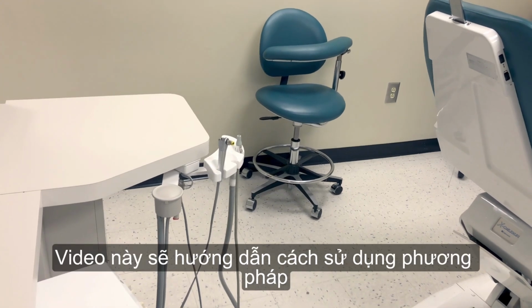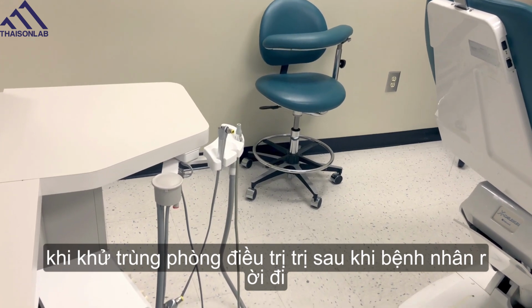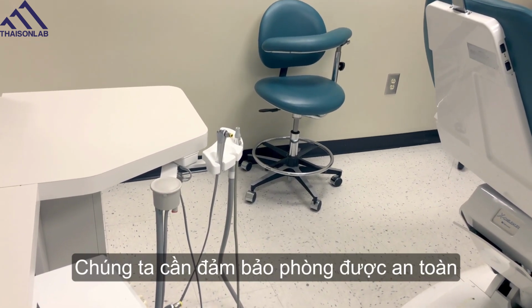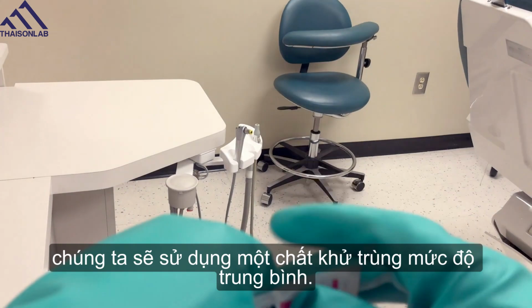Hi everyone, this video will demonstrate how to use the wipe, discard, wipe method when disinfecting your treatment rooms. After the patient leaves, we need to get the room safe and ready for use on the next patient. To do that, we will use an intermediate level disinfectant.